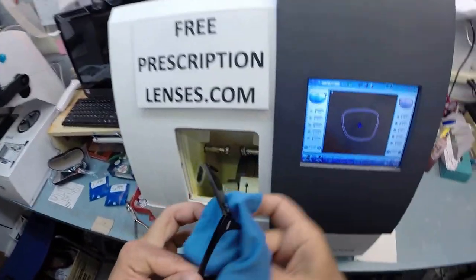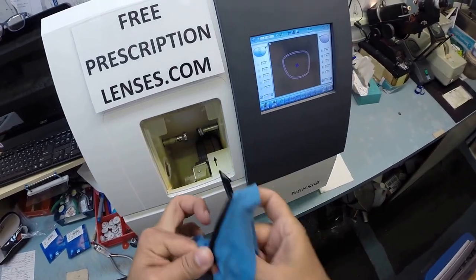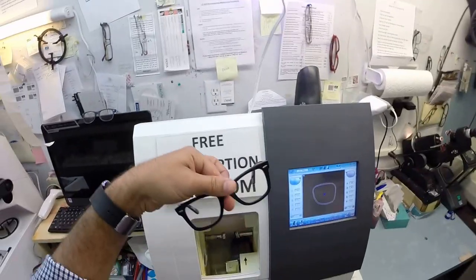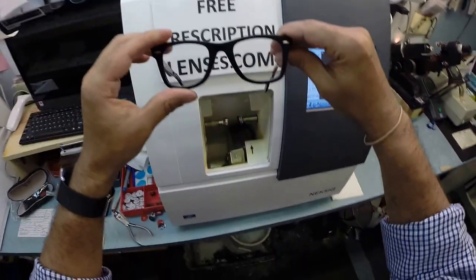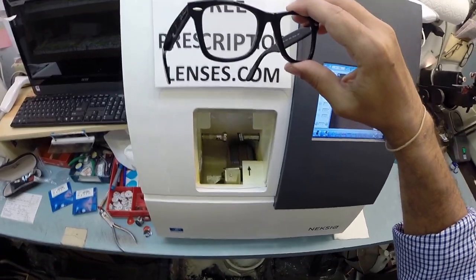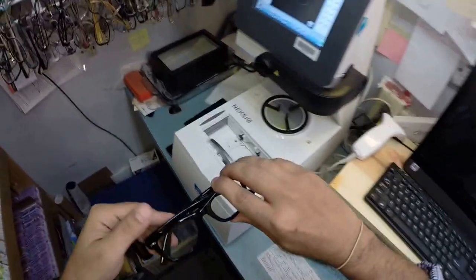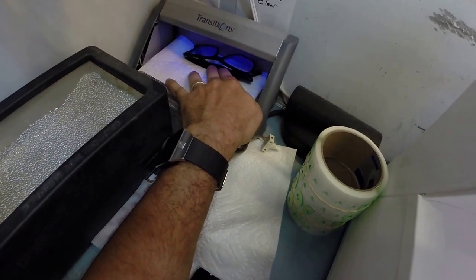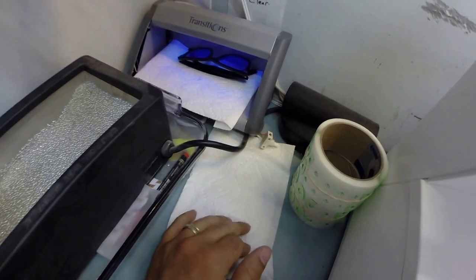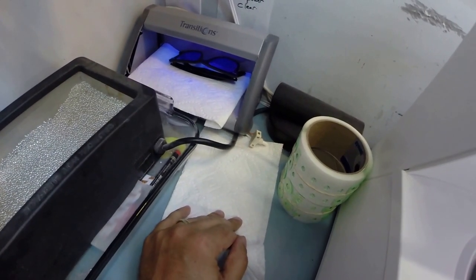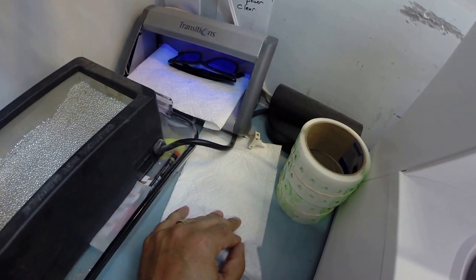So, Olayinka, I hope I'm pronouncing that right. Forgive me. It's the first time I've heard that name, but I just love it. It's a beautiful, beautiful name. So this is what your lenses look like clear. I'm going to go ahead and expose them to a strong burst of ultraviolet light in my little transitions box back here in the corner. And as you can see, it takes about 30 to 45 seconds for transition lenses to turn dark. It takes a little bit longer when you walk back inside of a building, 45 seconds to a minute to a minute 15.